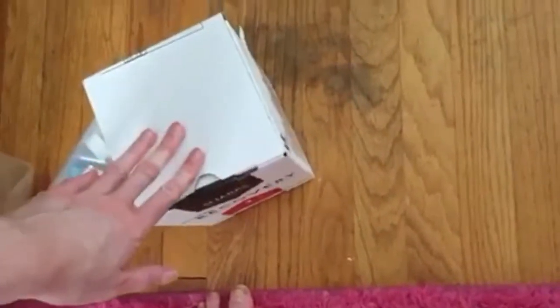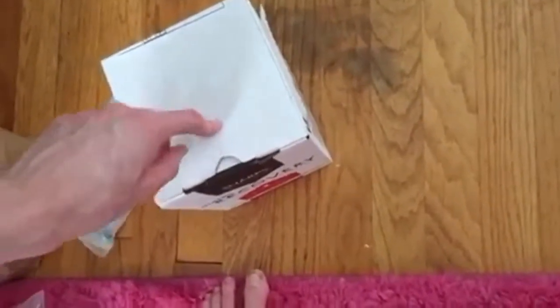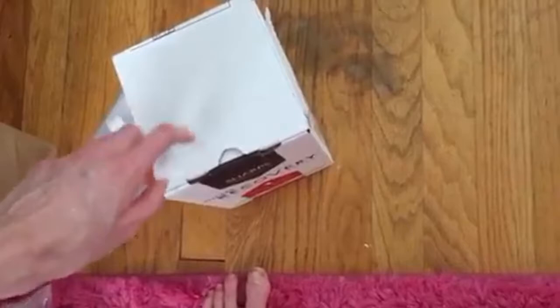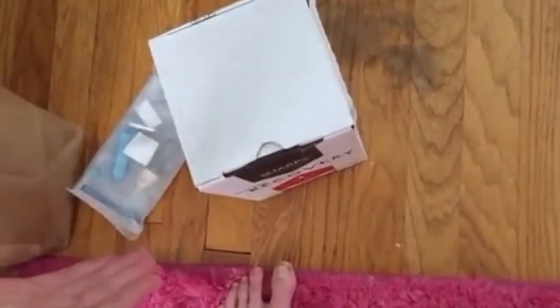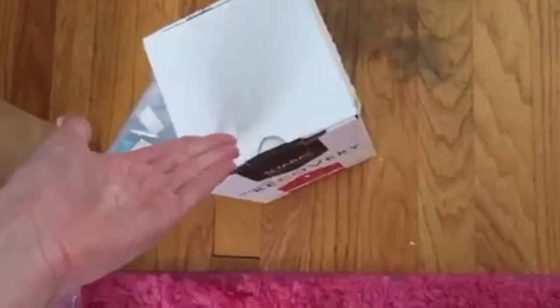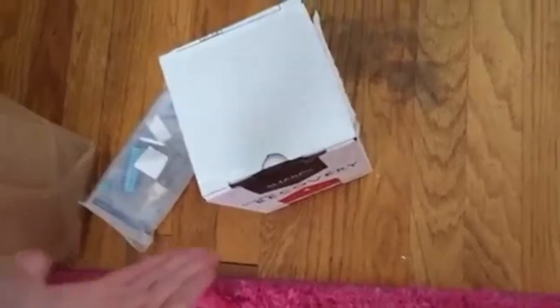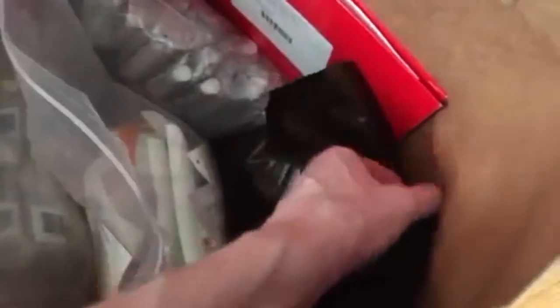For some of my other medications I've done before, with my IV antibiotics with Lyme, they had to be drawn up and used needles, and I just kept them in a random little box. I didn't have an actual sharps box. Now I feel so legit — I'm really excited to transfer those over to there.